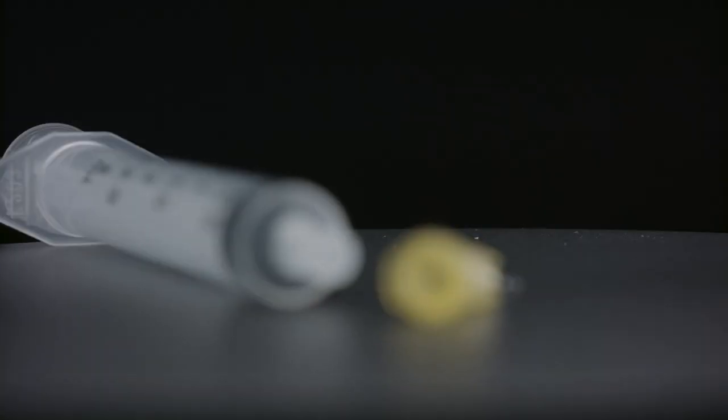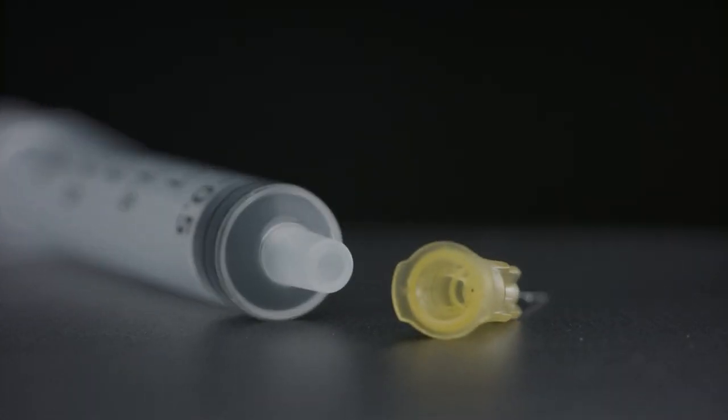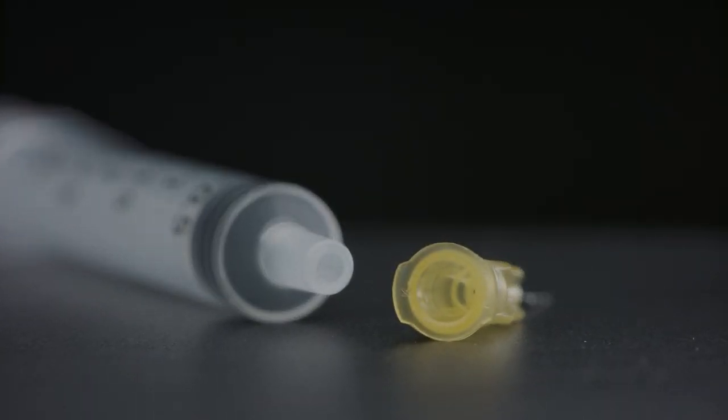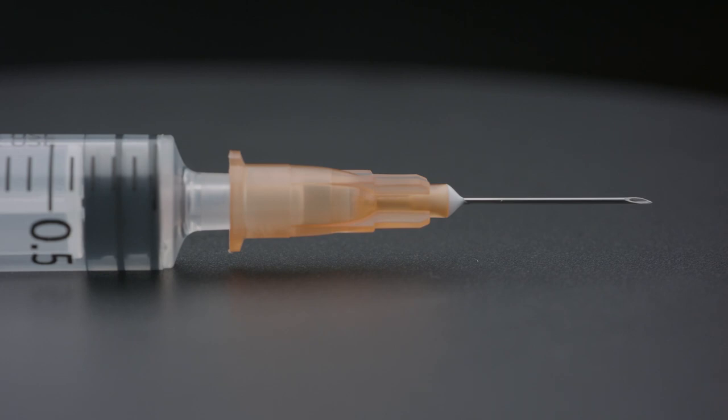Luer slip and luer lock syringes have a void space both in the tip of the syringe and in the hub of the needle, giving a dead space of about a hundred microlitres.